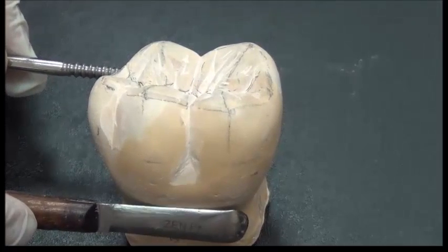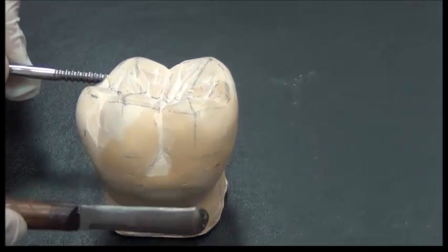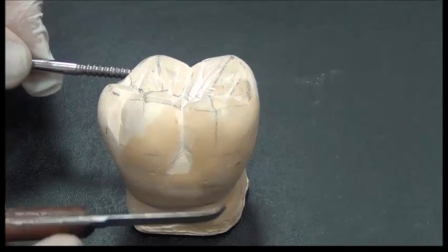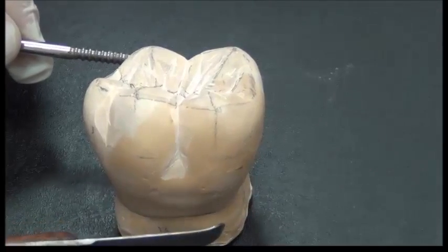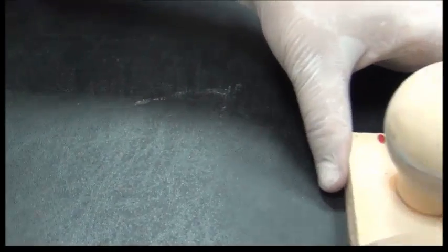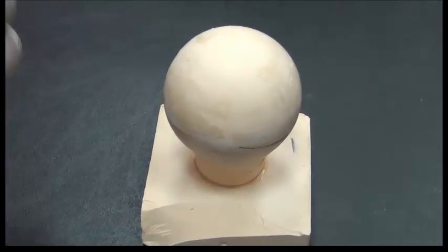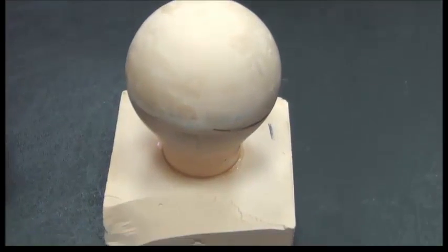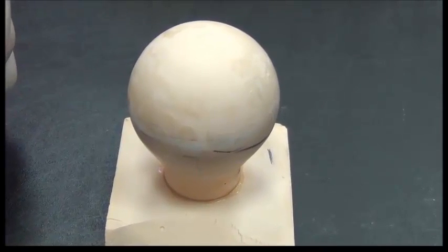So this is called retention, meaning prevention of dislodging forces. To locate this metal component, I need to know where the undercut is present. So let's take a simpler model, showing an object that is oblique and round. In a way, a simpler demonstration of the tooth.